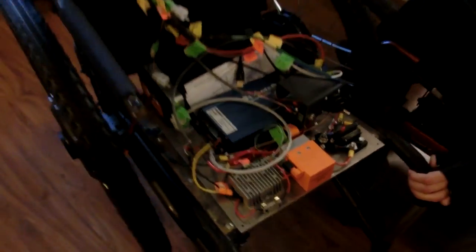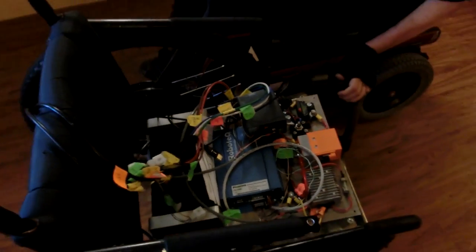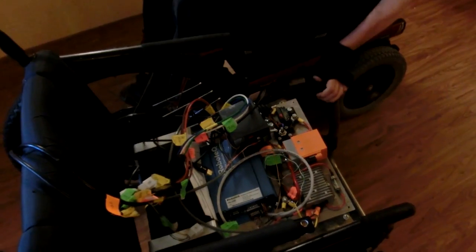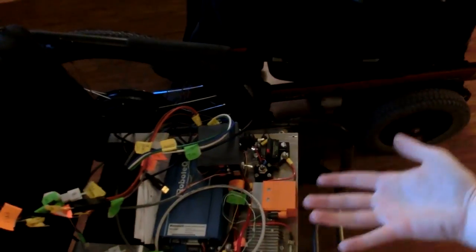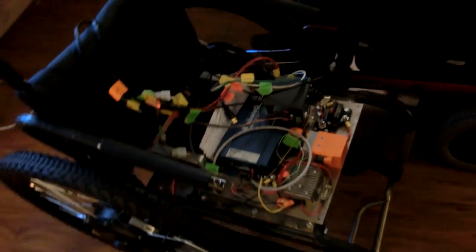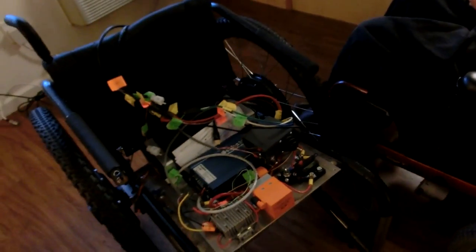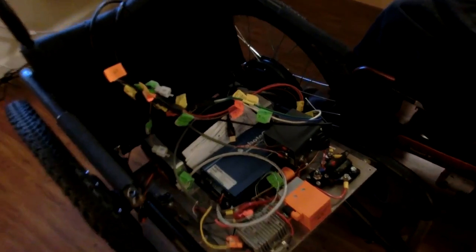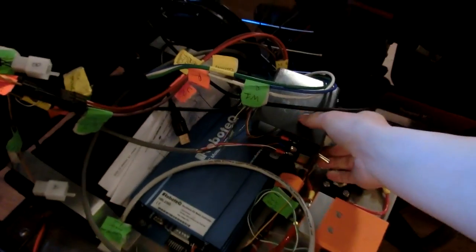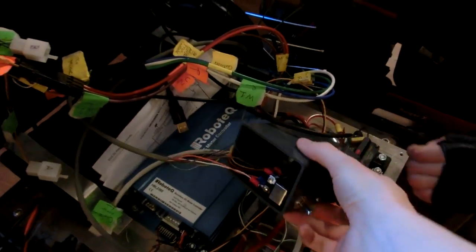Have you actually put it in the bottom yet? Yeah everything has gone in, everything's to measurement and it's pretty much ready to roll. It's still in prototype phase.